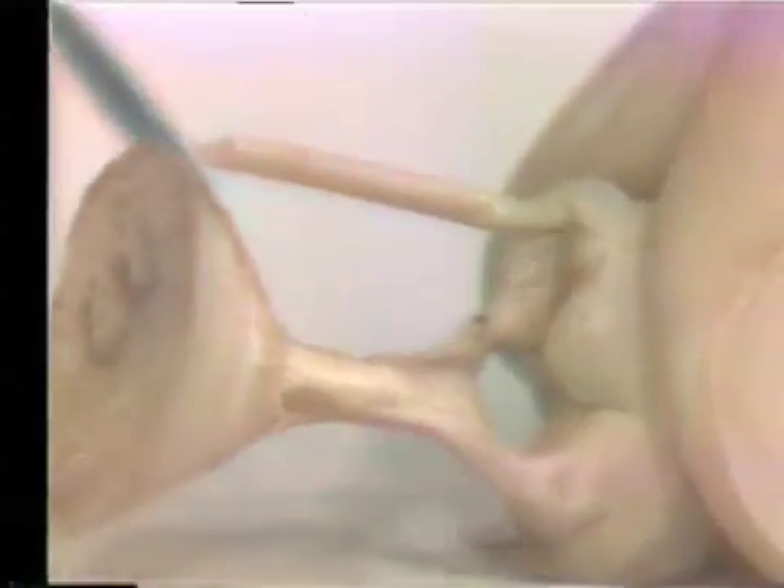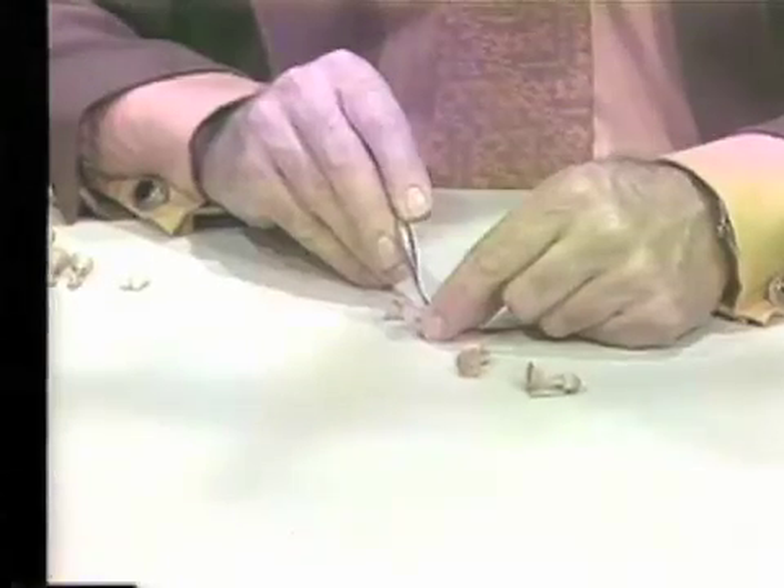May we have the close-up of this? Again, it has a vent and a wide sprue, and the sprues are much shorter. You may notice that right around the sprue there is a very poor surface, but overall it is much better than the previous ones. One may say that all that matters is the pontic itself — from that point of view, this may be acceptable. The main reason for the remaining issue is that the much smaller size of the sprue freezes before the pontic has a chance to freeze. Therefore, the pontic is actually feeding the sprue rather than the sprue button feeding the pontic through the sprue.